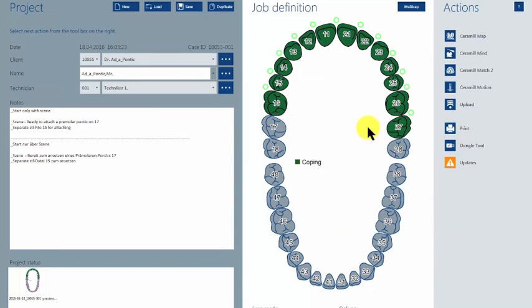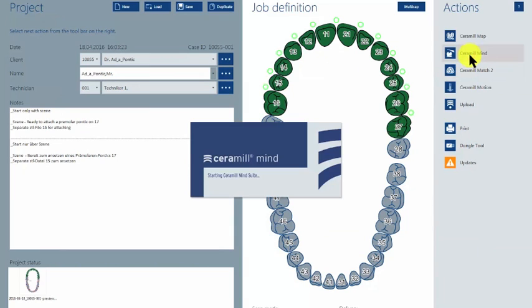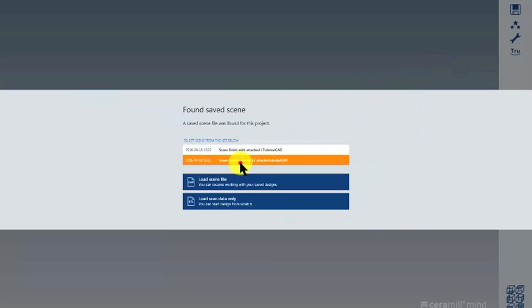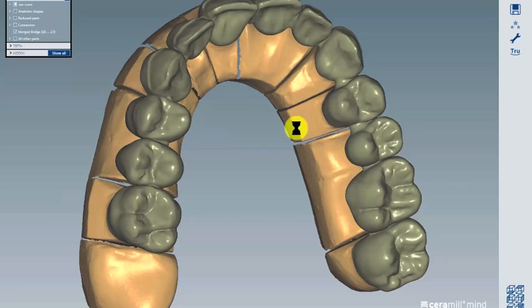So let's go! First, you open your finished construction—the scene file which you have just done before. It will look like this, with number 17 missing.